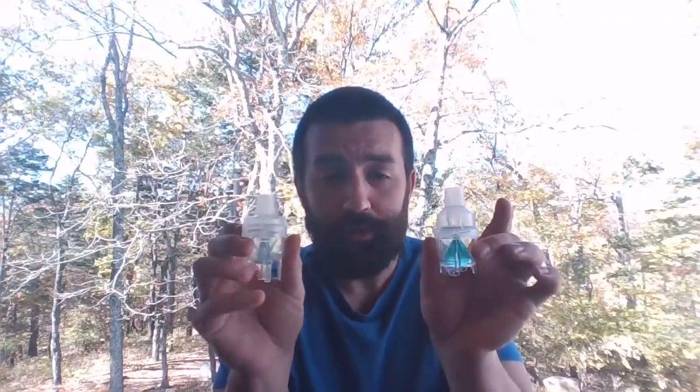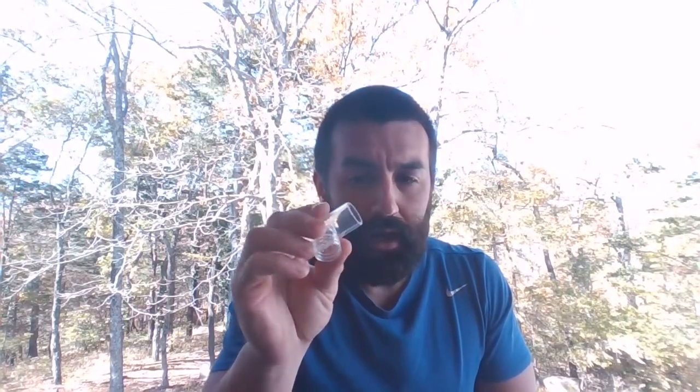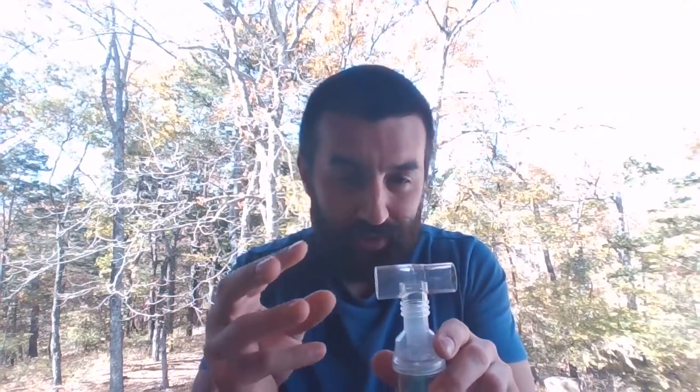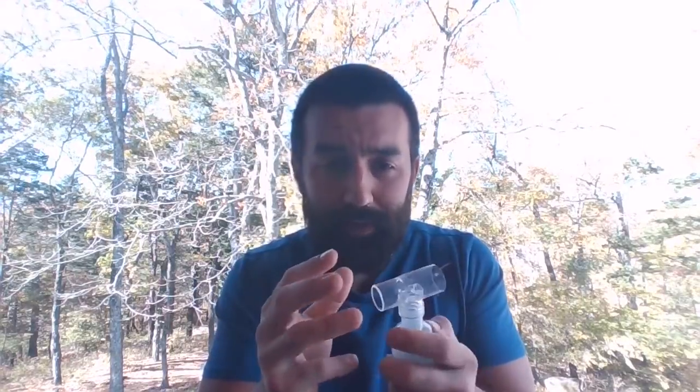All right. So for both of these jet nebs to do a mouthpiece treatment, you're going to need some other parts, okay? Now, the nebulizers I have here, you'll see this Misty Mix, you may not see this green one here. It's got a very unique T-piece, okay? And we talked about T-pieces before. This T-piece is always going to go on top of your nebulizer, where all the aerosol is going to be emitted from. This T-piece is unique in the sense that it only has a 22 OD adapter on one side and not the other. So on these, there is a right and wrong place to put your mouthpiece and your corrugated tubing. A lot of them have a standard T-piece with a standard 22 millimeter OD adapter on each end, so it's interchangeable. If it's not going on one side, flip it, and it's going to go on the other.